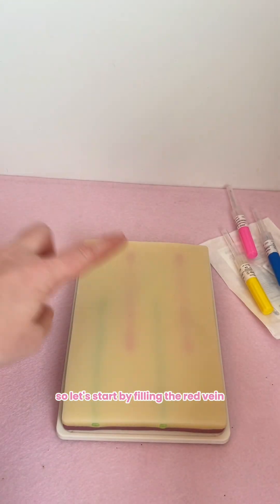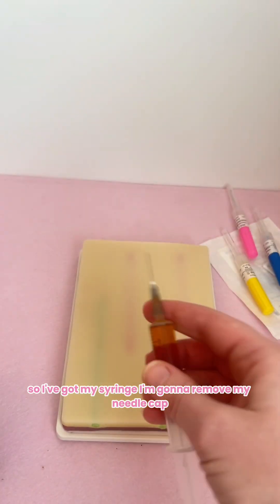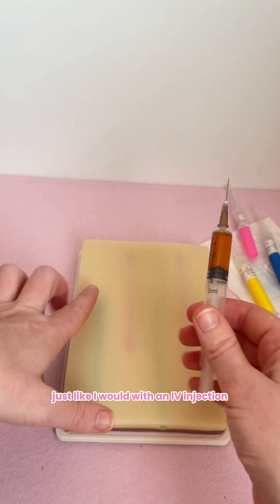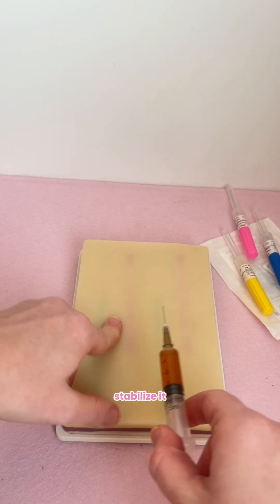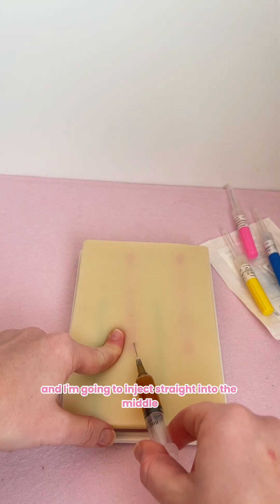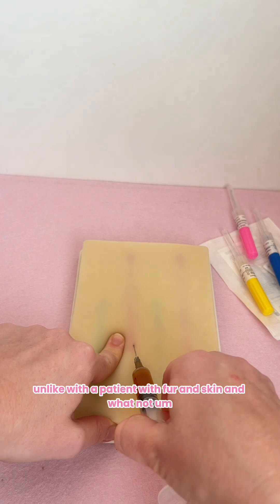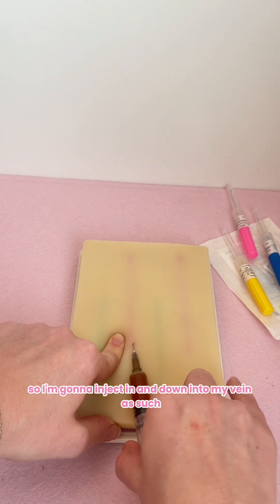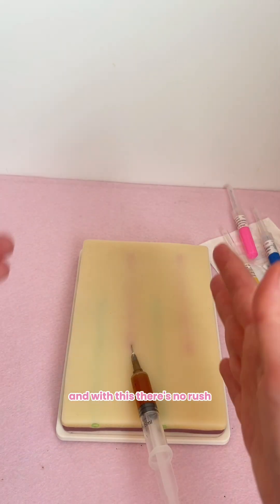Let's start by filling the red veins. I've got my syringe — I'm going to remove my needle cap, making sure that my bevelled edge is facing upright, just like I would with an IV injection. I'm going to place a finger next to my vein just to stabilize it, and I'm going to inject straight into the middle. These are great because you can see them, unlike with a patient with fur and skin. So I'm going to inject in and down into my vein.